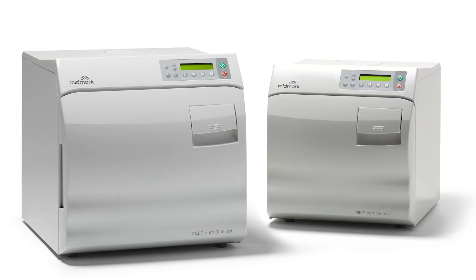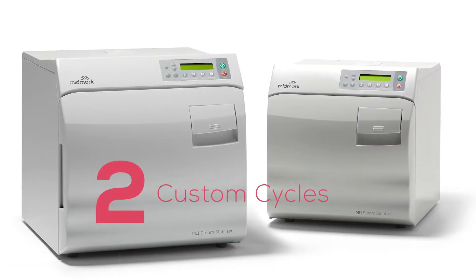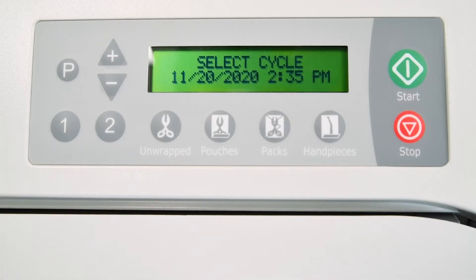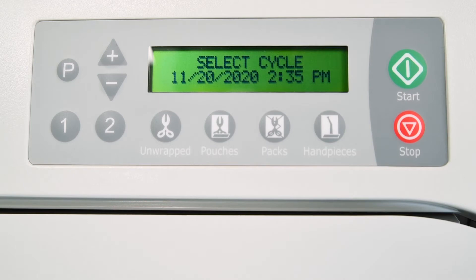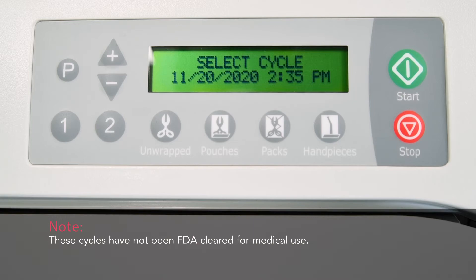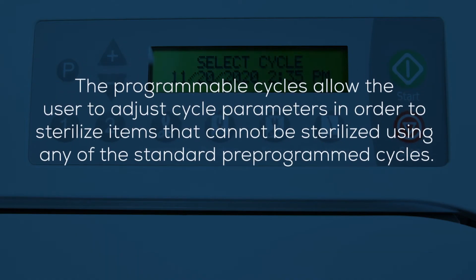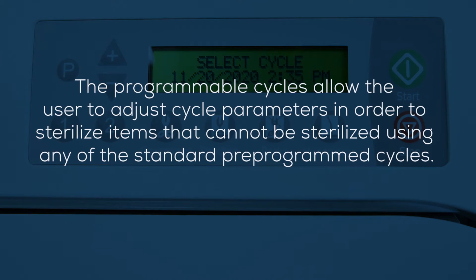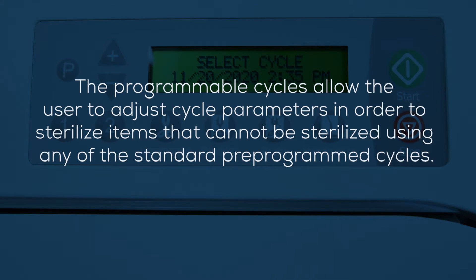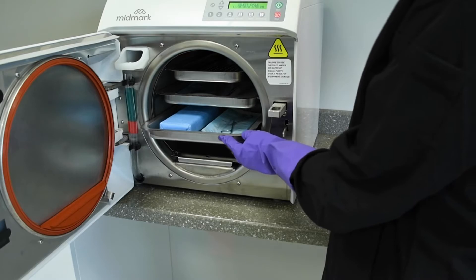For maximum operational flexibility, M9 and M11 steam sterilizers offer four pre-programmed cycles with the capacity to store two custom cycles. Cycle buttons 1 and 2 can be used to create custom sterilization applications that are not covered by standard cycle programs. These cycles have not been FDA cleared for medical use. The programmable cycles allow the user to adjust cycle parameters in order to sterilize items that cannot be sterilized using any of the standard pre-programmed cycles. Cycles for routine maintenance can also be programmed and stored for easy access.